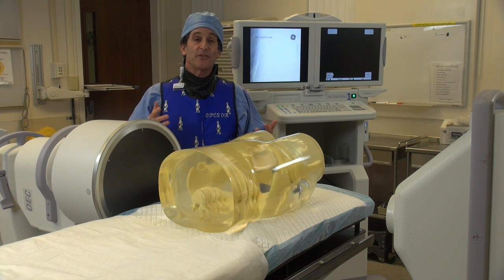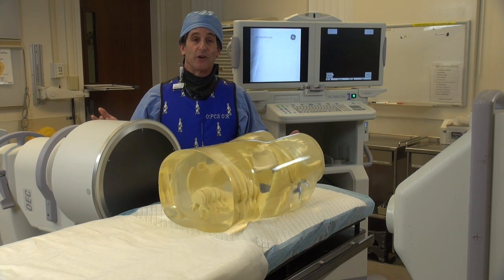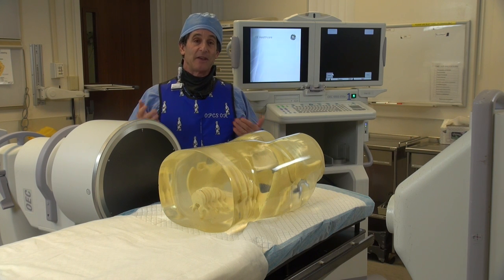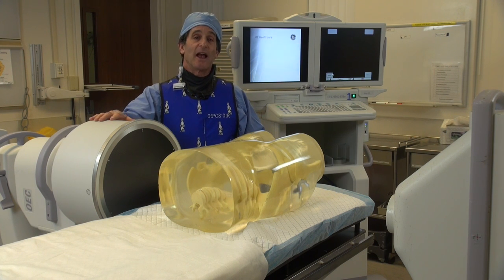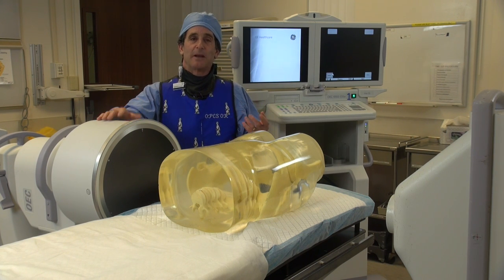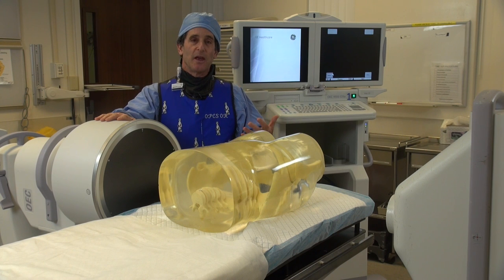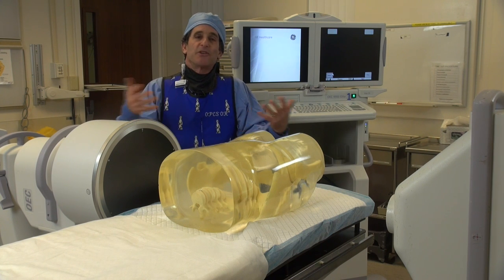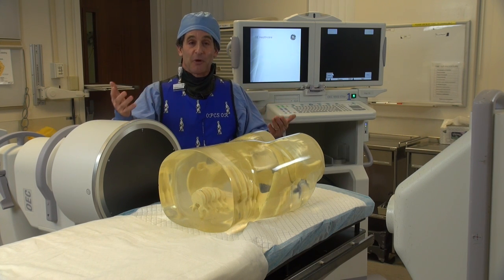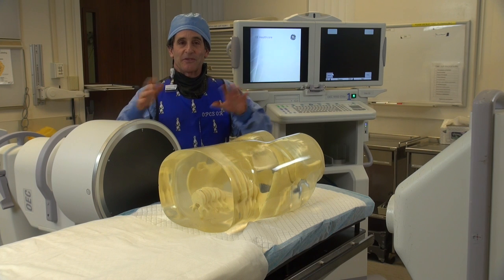Because of that, you're using half the dose, but you're also going to have an image that has much more chance of being a mottled image, because there's not usually enough X-ray to make the perfect image. So that's what you have to give up.